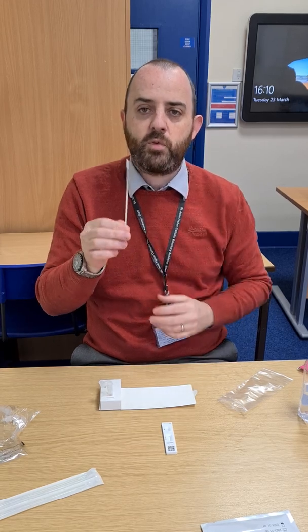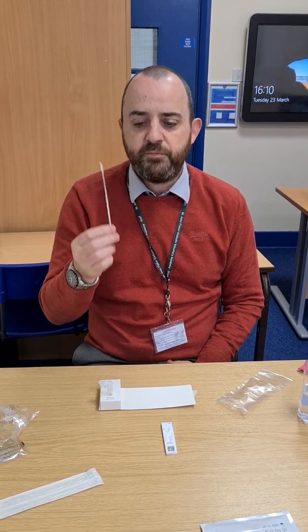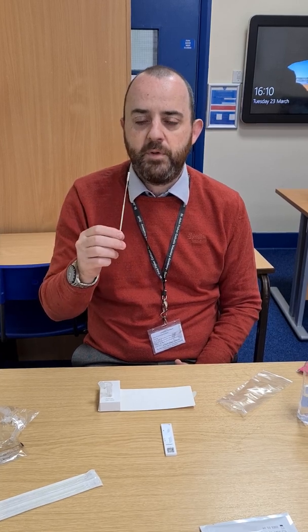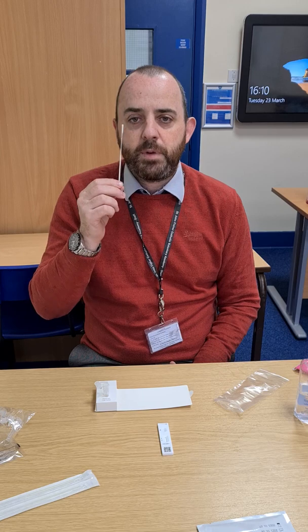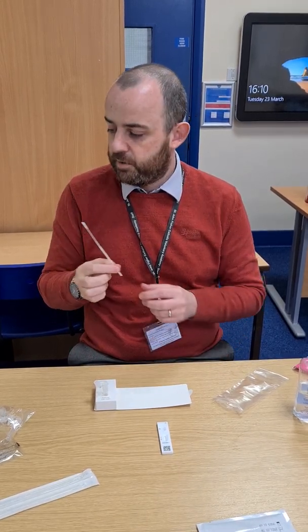When doing the swabbing, you'll do four swabs on either side of where your tonsils are. Most of you will have had practice at this part of the testing already. Once you've done the throat swab, place the swab up your nose and turn it around ten times once you reach a bit of pressure.